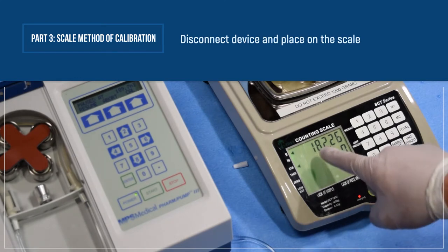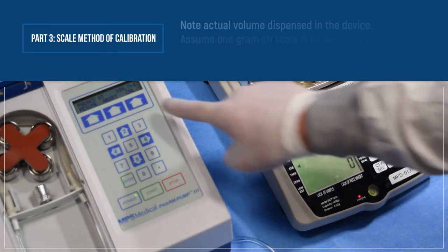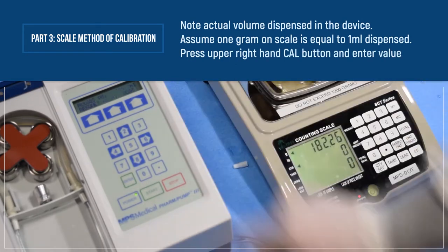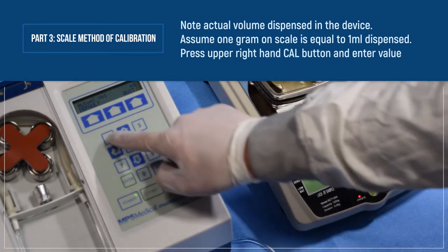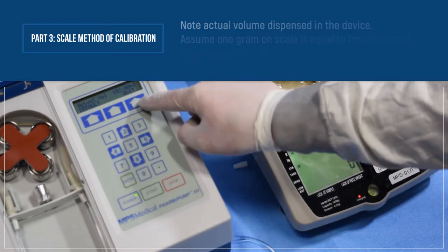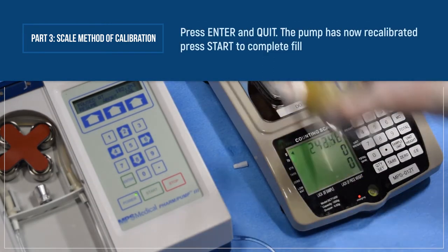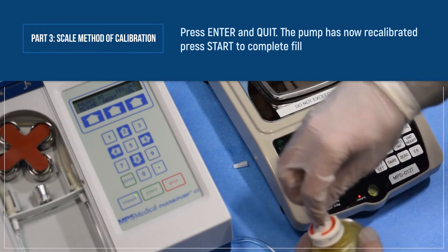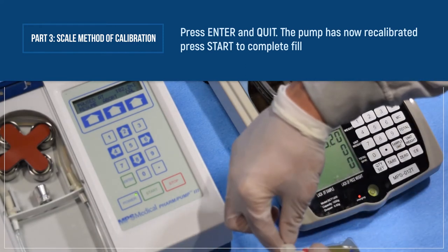Note the actual volume dispensed into the device. Press the upper right hand Cal button and enter the volume dispensed. The pump has now recalibrated. Reconnect the device and complete the fill.